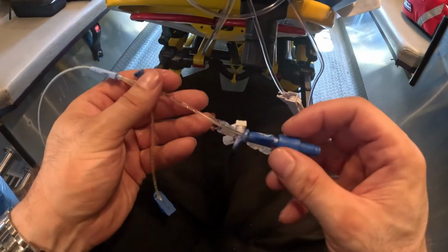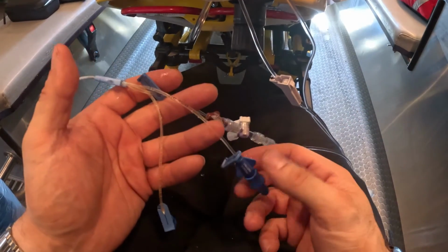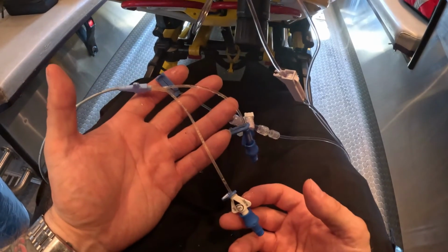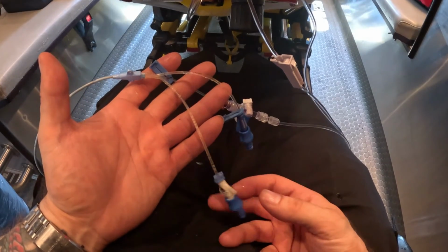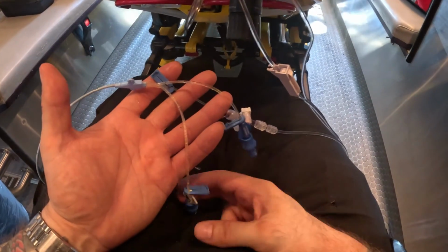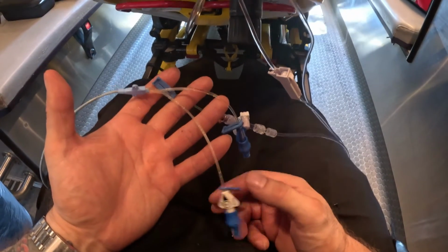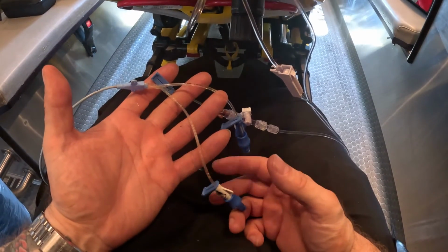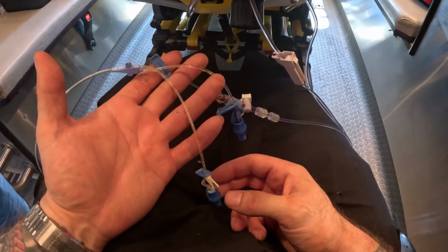The blue port, the medial port, I'll probably connect all my sedation, my propofol, my fentanyl, and this white one will be empty, nothing connected to it. I usually have it in where I need to give push dose medications. So let's say patient goes in cardiac arrest and I need to give an epi push, I will connect it here, or maybe I need to give an IV fluid bolus or anything along those lines. This stays free. Another reason why I like to keep it free, in case the patient needs total parenteral nutrition, TPN, we cannot infuse any medication, so you could just keep it open in case the patient doesn't need any emergency medicines. But usually that's my thought process.